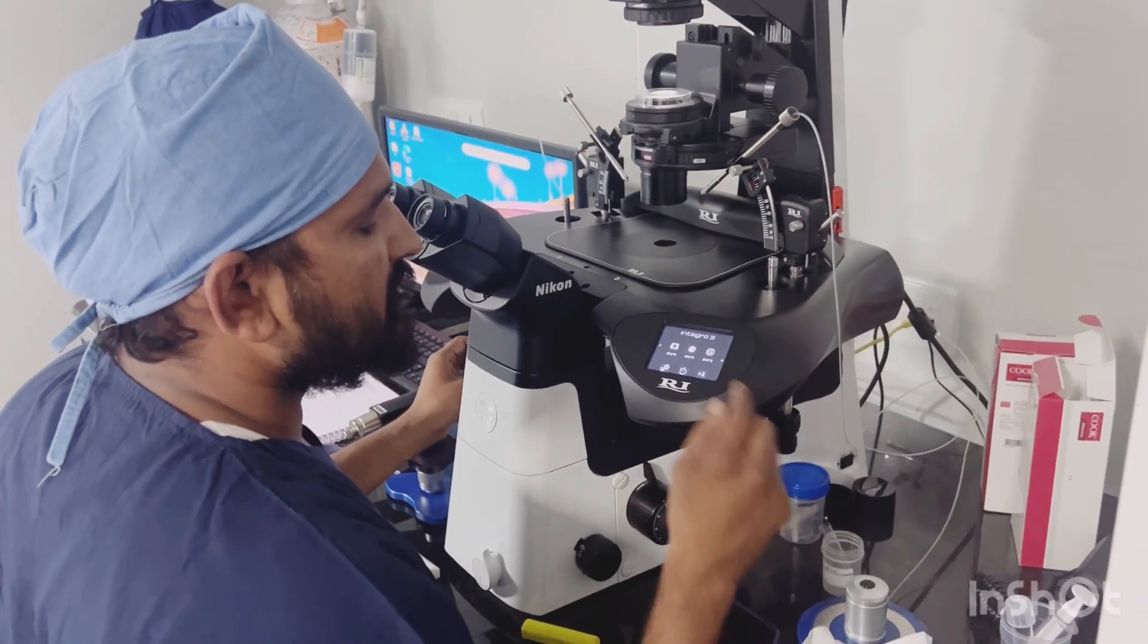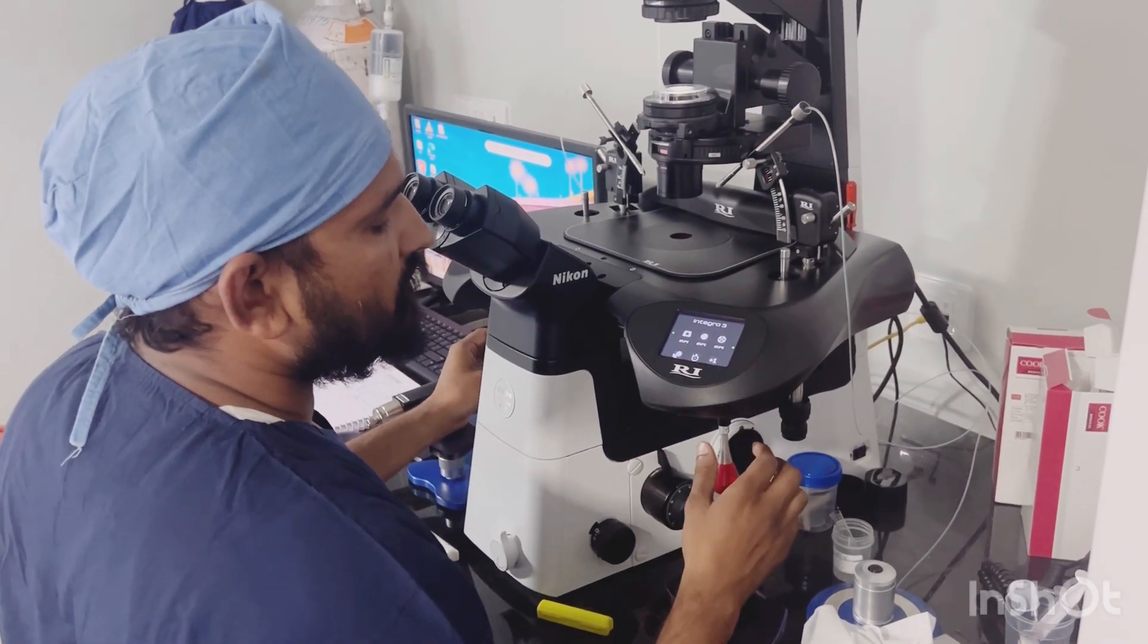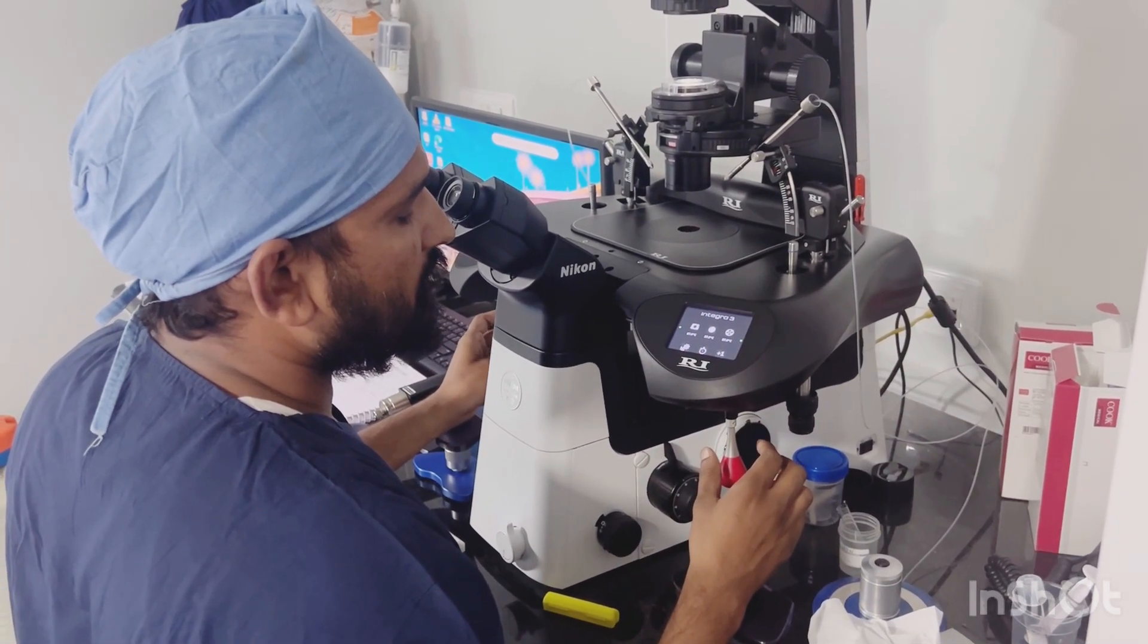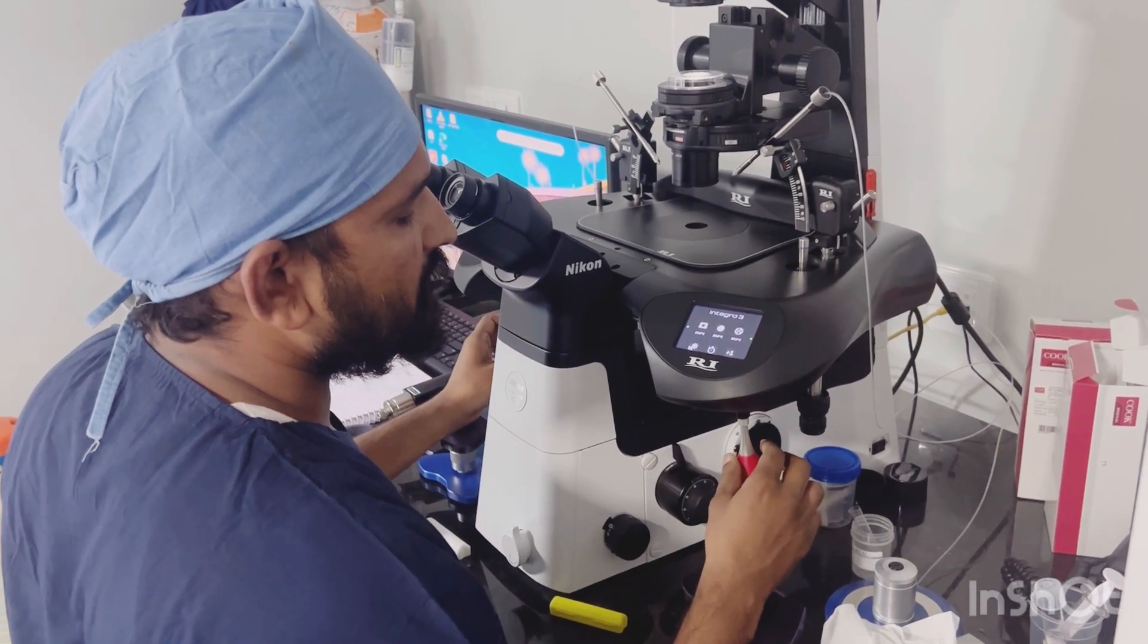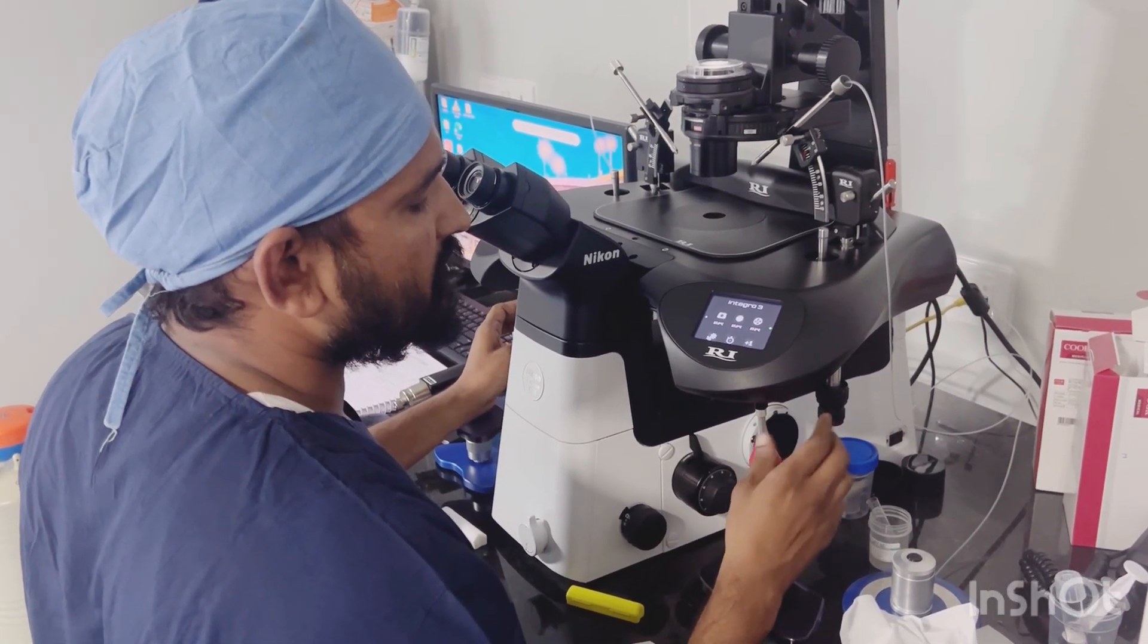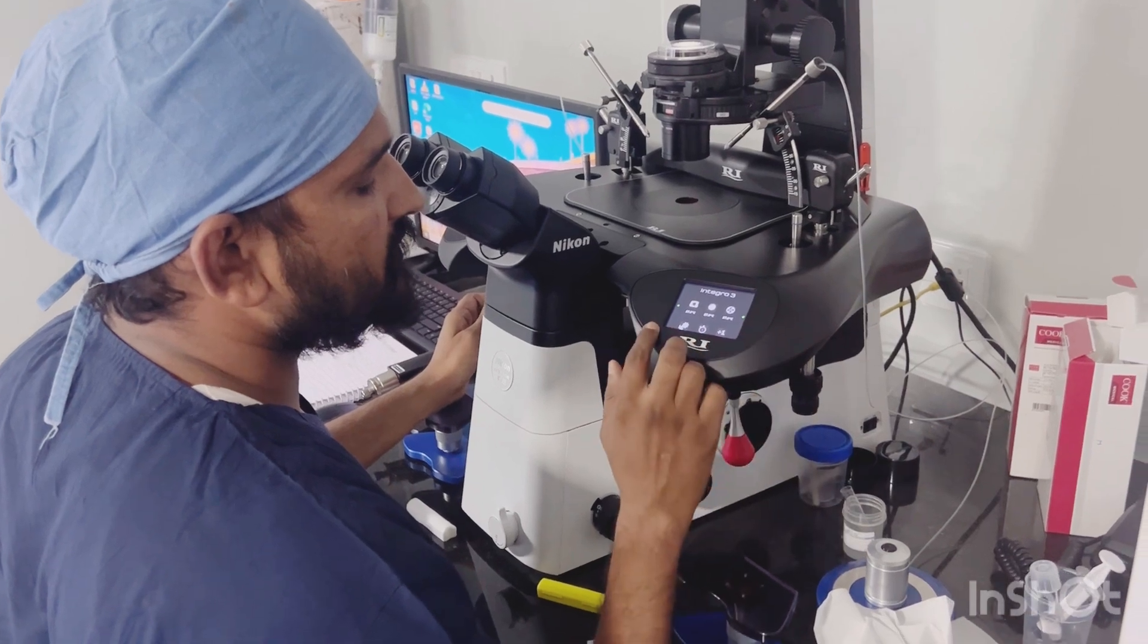First of all, we start with this display. We have to align the green dots in the middle - this is our zero position. This is for your injecting, this is for your holding.